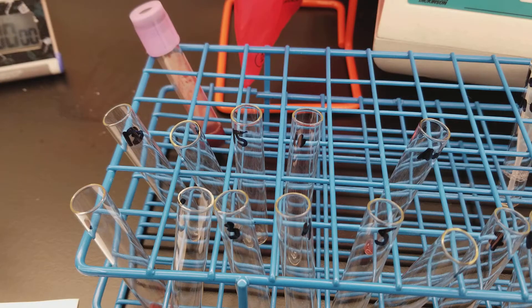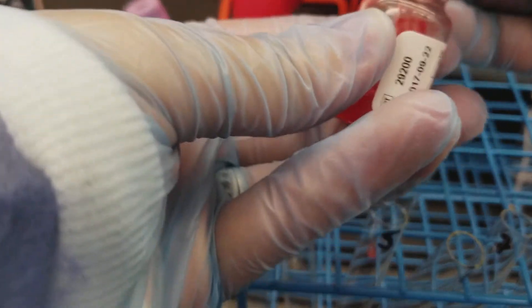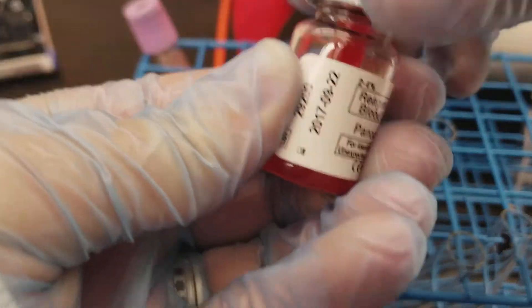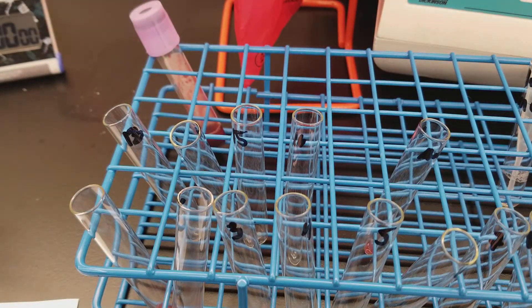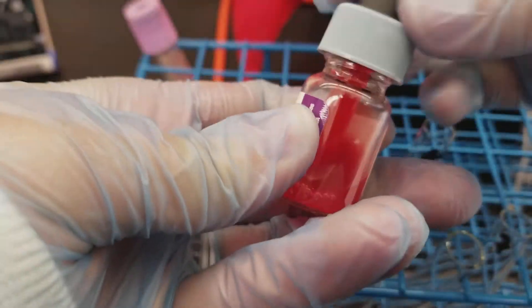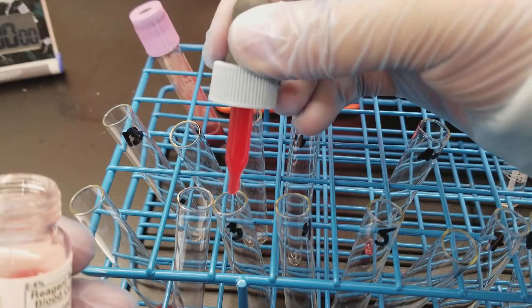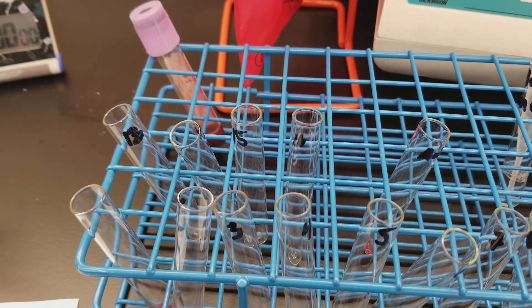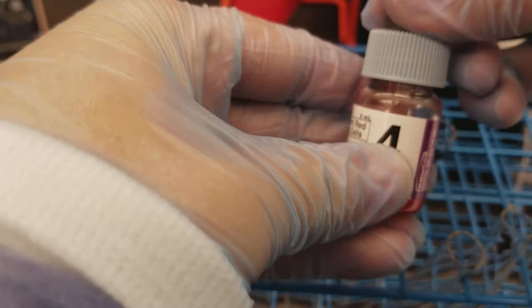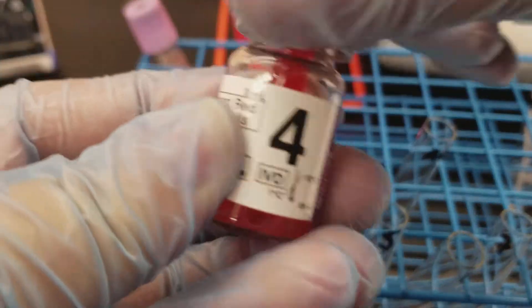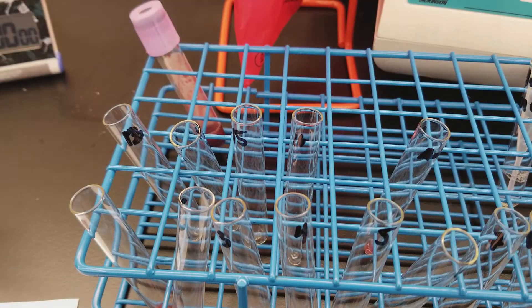I'll do a couple more and then I'll finish up off camera because this is going to be crazy. I hope you're going to have as much fun as I am. I did the auto control first so I didn't forget, and you can do that if you want as well. One, and then that was cell three. And now we'll do cell four. I'll come back when I'm done with the rest of them and we'll get moving.